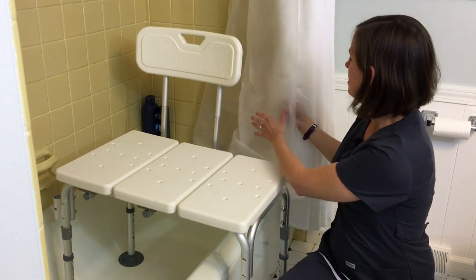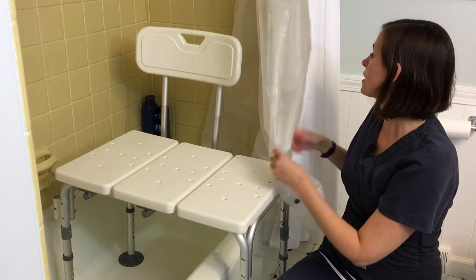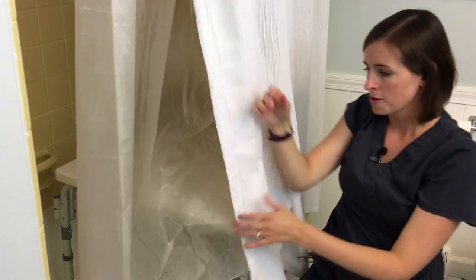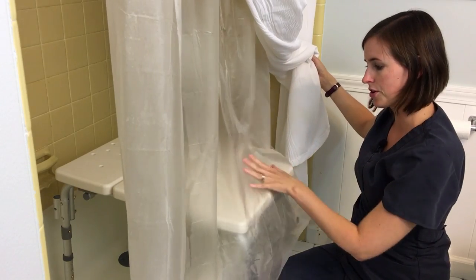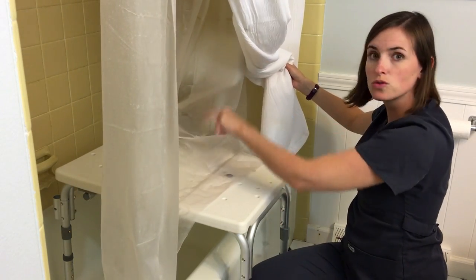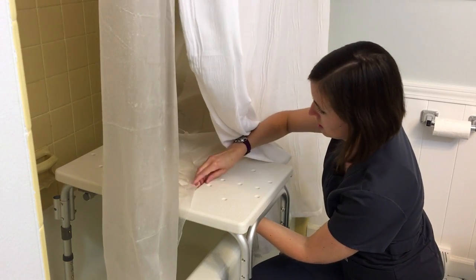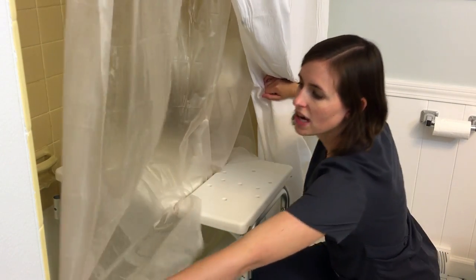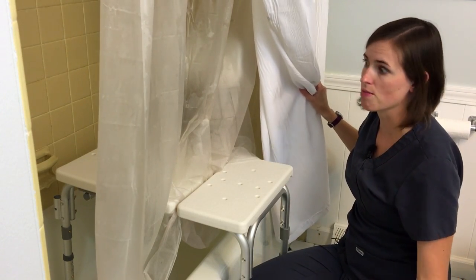What you're going to need next is a cheap plastic shower curtain — and I emphasize cheap because you're going to cut it. What you're going to do is open the shower curtain all the way to the edge of the tub, then pull the other aside. Check where the tub bench is along the shower curtain — as you can see, there's a little crease here that works perfectly. If you cut the shower curtain with two slits and slide that slit you've created down into this crease, which sometimes takes a little doing, you pull it down through. You can choose not to cut it, but I find that it makes it much cleaner and it slides down a little easier. Once it's pulled through, that's really going to keep the water from spraying out and soaking your entire bathroom while you're taking your shower.